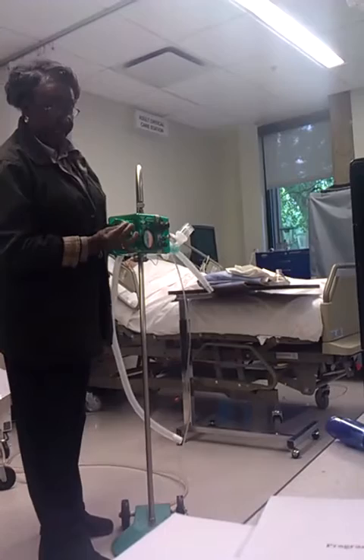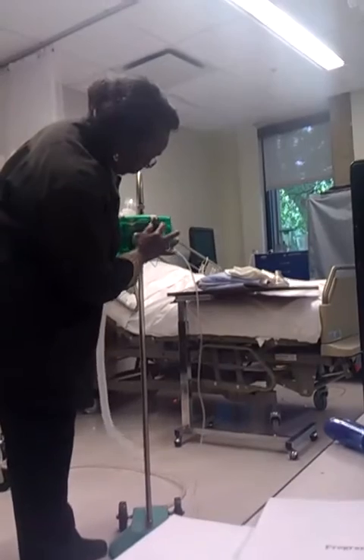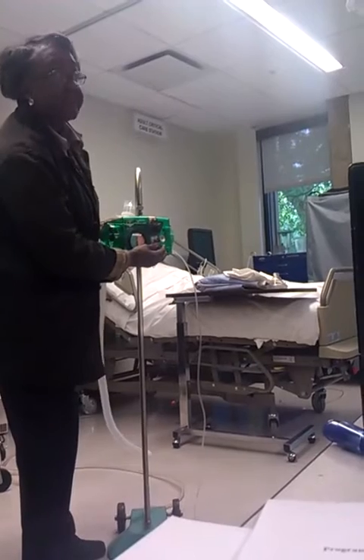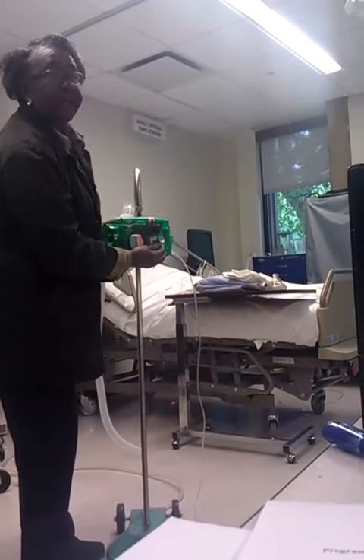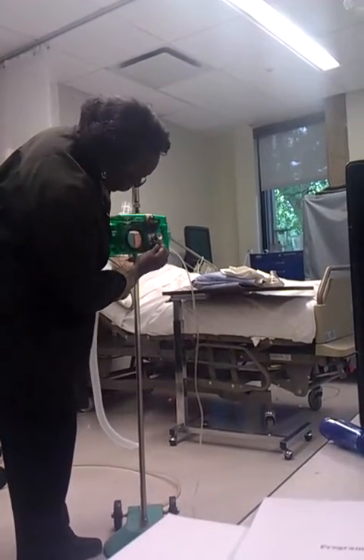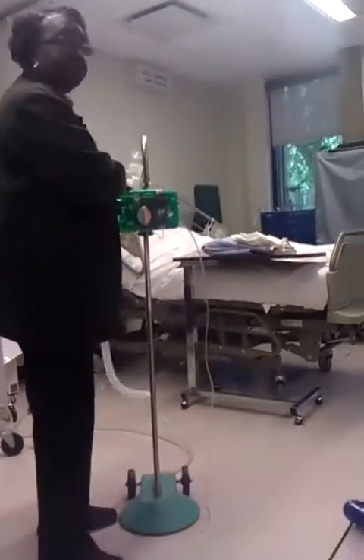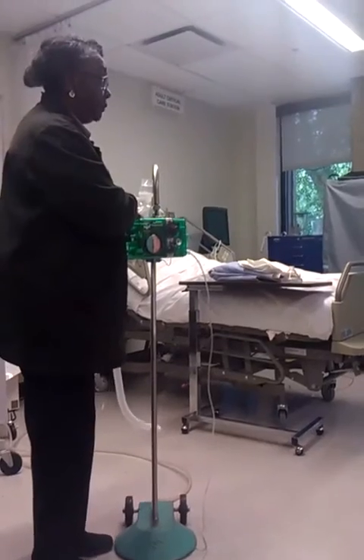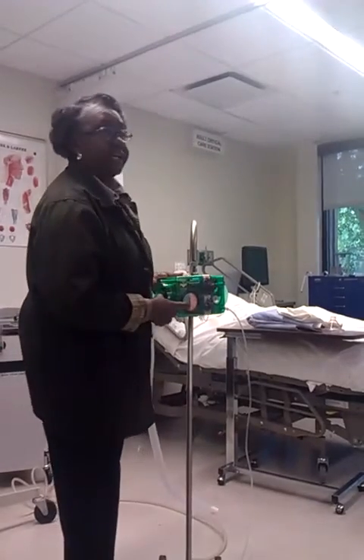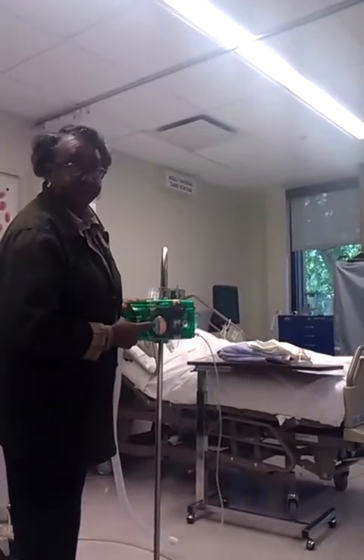This is here. This is the sensitivity. This side is the pressure. You're going to set your liter flow. Now, this button was used to set a rate if and when it was used for mechanical ventilation. We very rarely, if at all, do that anymore, except in those areas where I was talking about before. But as you can see, there's numbers on here, but they don't really correspond with anything. You have to actually stand there with the watch and count the rate to get the rate you want, which makes it a very difficult thing to work with. The pressure that you generated is going to be shown on your pressure manometer.